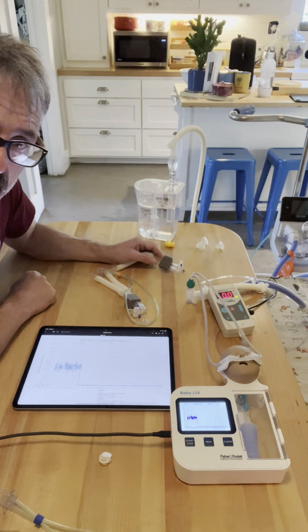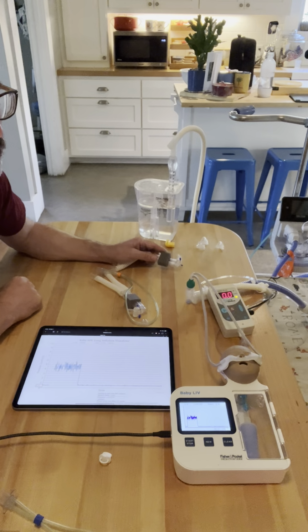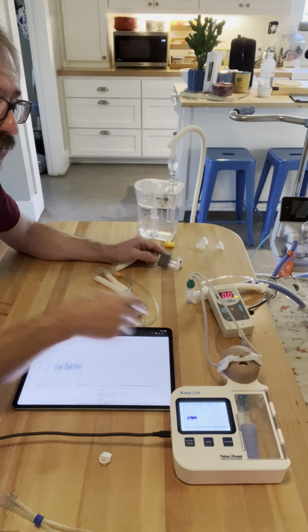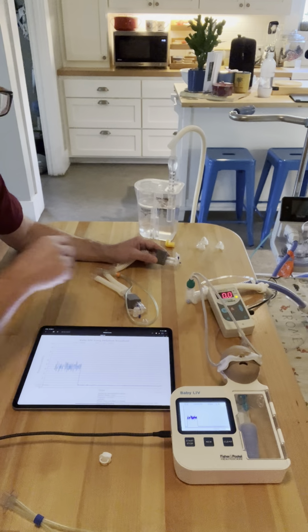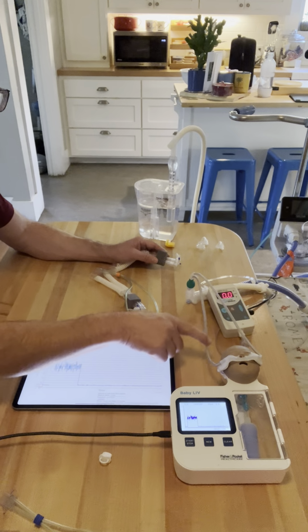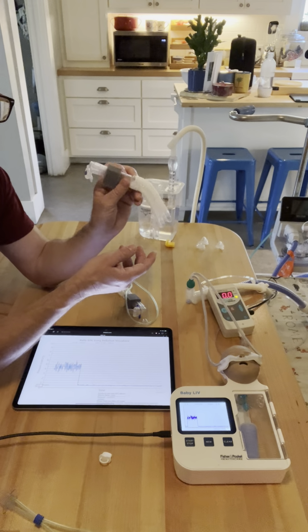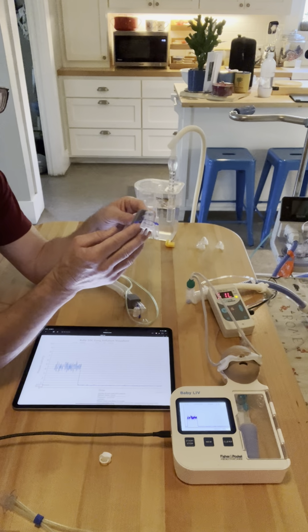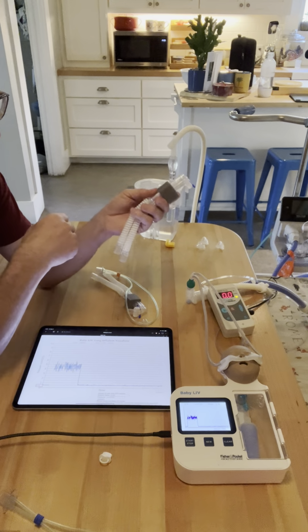But it's still not meant for CPAP because we just simply can't maintain that CPAP because the baby cannot keep their mouth closed in order to receive that continuous positive airway pressure. They're forced to exhale out of their mouth because of this large exhale. So as clumsy as this interface appears to be to use, or Hudson or others, they're designed this way for a reason, in order to give the CPAP that you want.